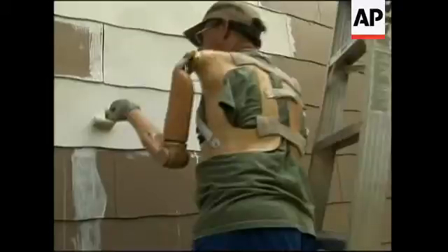This enables him to do the things he does at home, including painting his fence, doing housework, working around his yard, and picking things up. That's what this technology enables — a more full life.